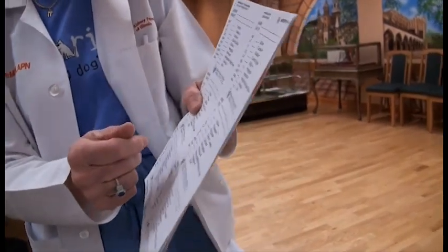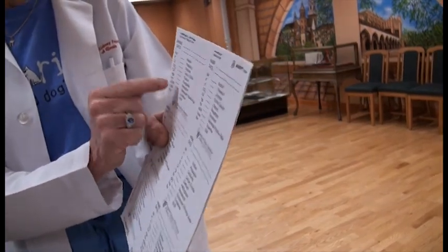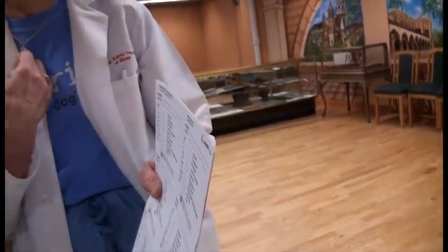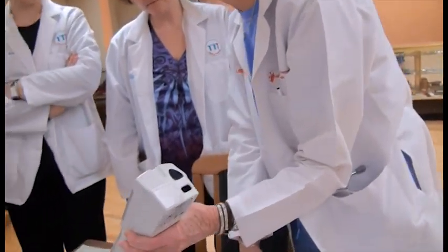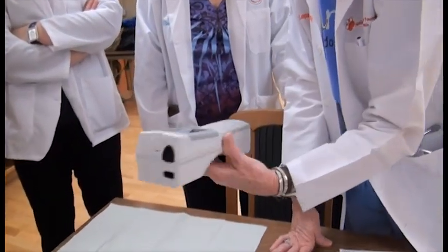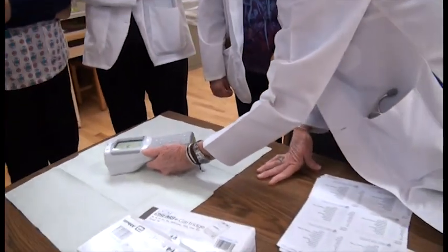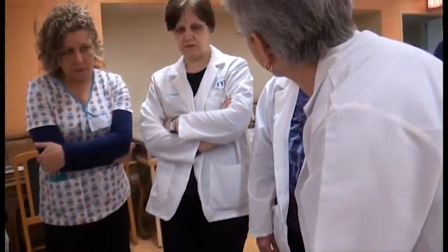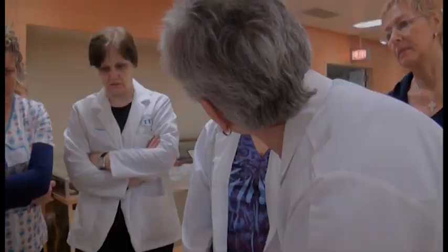So you put their name and the date. You'll be able to fill in all of the information, with the exception of the GFR, which we can calculate for them when we talk to them. Now it's calibrating — time to results, there's the 120. The machine is counting down. When it's doing all of this, you cannot remove the cartridge; it's locked in place. But as soon as it's finished, the cartridge comes right out.